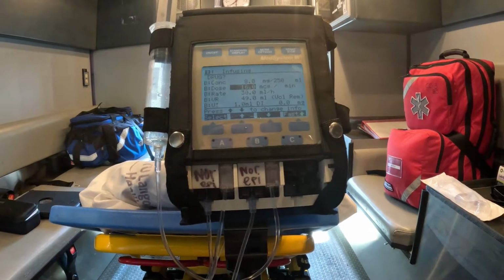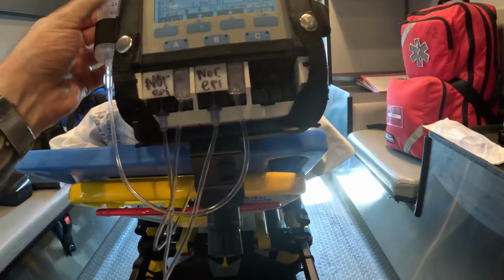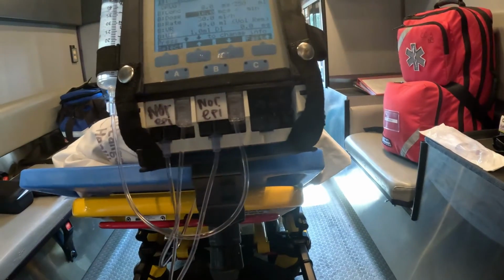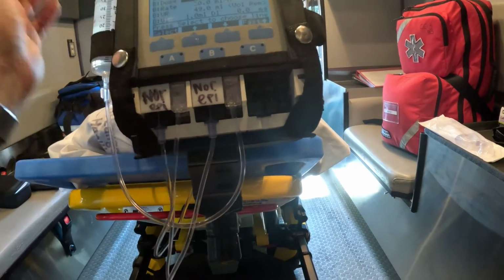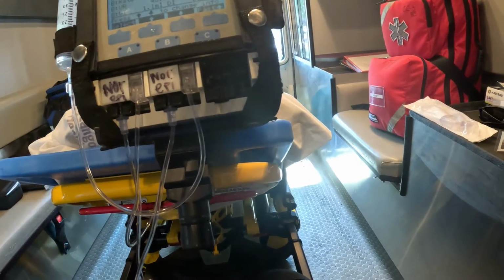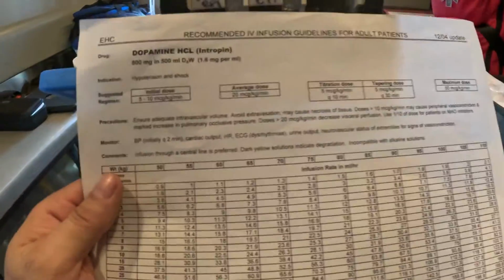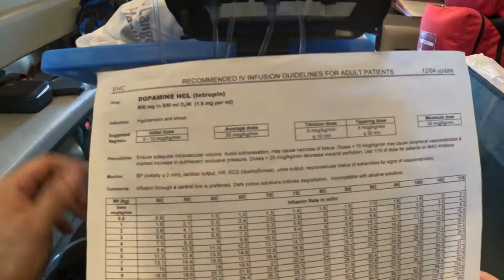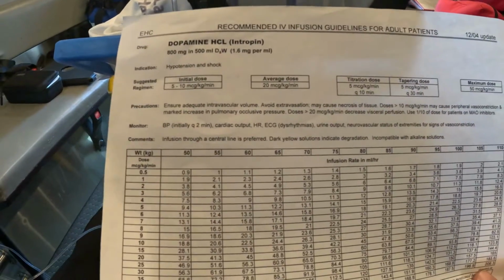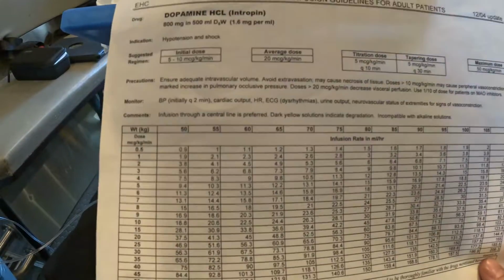I'm going to show you one more drug. I want to show you dopamine, and I'm not going to essentially pull this up, but I'm going to show you how to input this on this pump. I have another drip sheet for dopamine, and the reason why I want to do it is I want to show you how to do a weight-based drug as well. So dopamine, we all know dopamine. Again, it can be given in cardiogenic shock for vasoconstriction, and could also be given as a chronotropic dose rate.